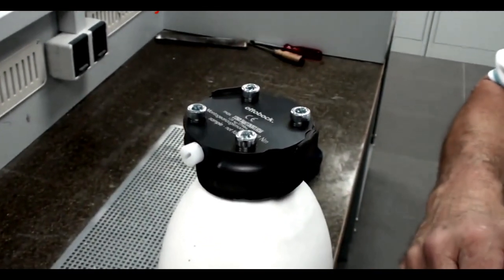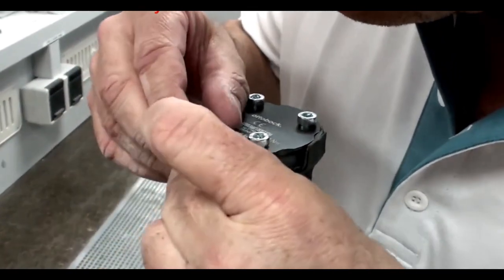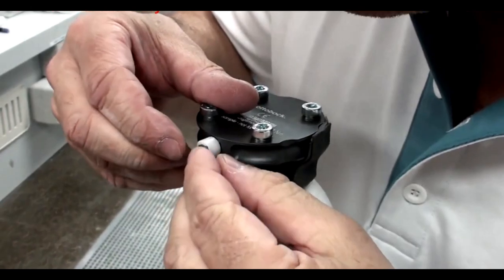Take more Plastisil and cover the lamination dummy as well as the cap or hex screws.